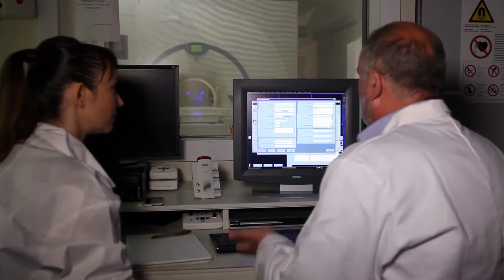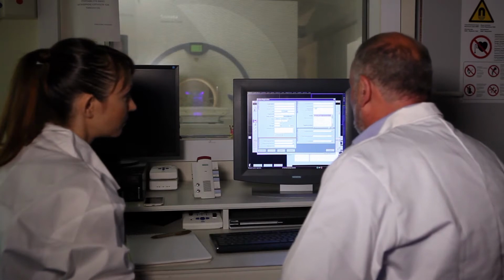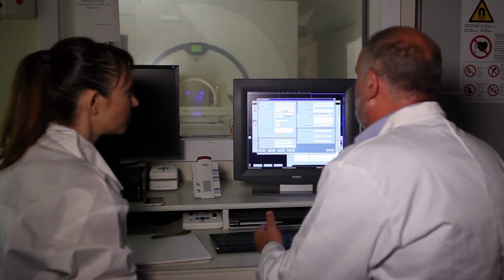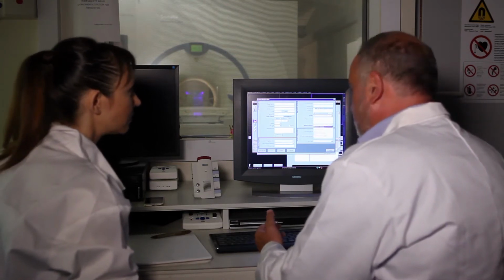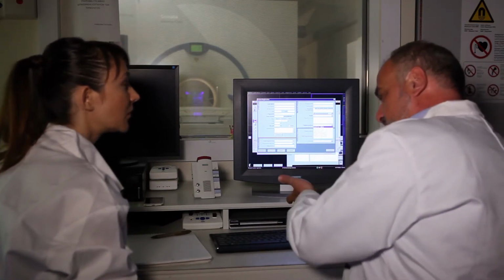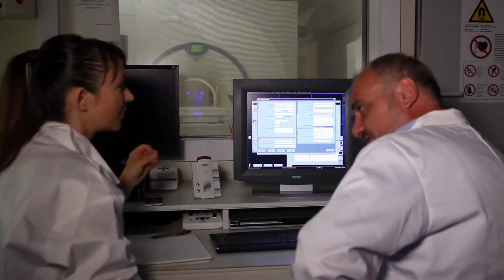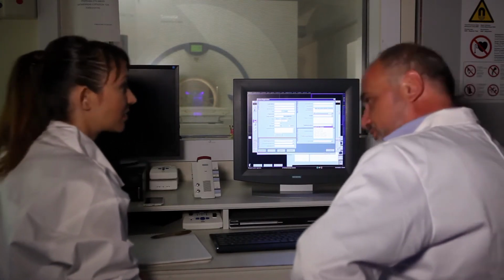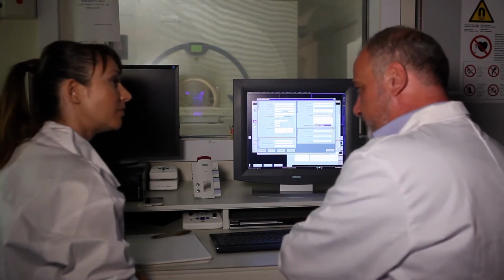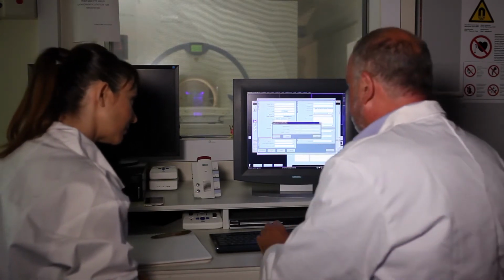Now we choose the study, and in our case we're going to use the MRI QA Vision Sonata on the system. The patient position should be head first, supine. You assume that you have a patient who enters the magnet with the head first, and supine. I actually saw on the phantom written the chin and the head. Exactly, that's the assumption: the supine position with the head first orientation. Okay, so this button is okay. The exam can start. So we start the exam.